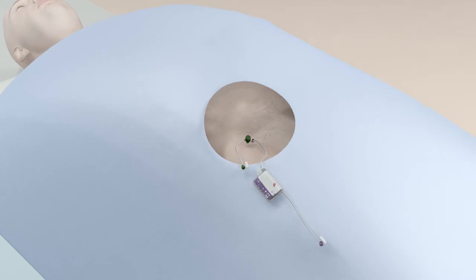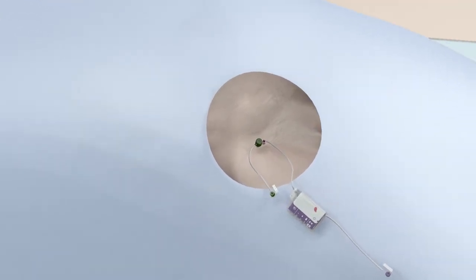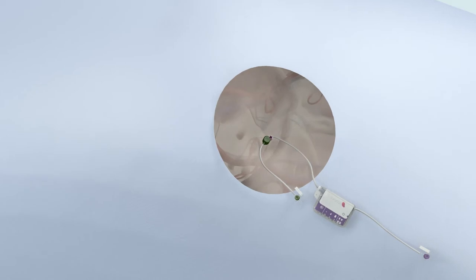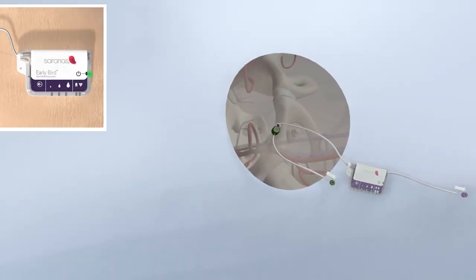The Early Bird recognizes the onset of bleeds prior to patients becoming symptomatic and provides an additional level of assurance during and after procedures in patients most vulnerable to bleeding events.